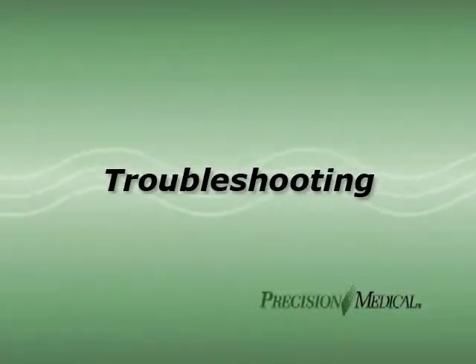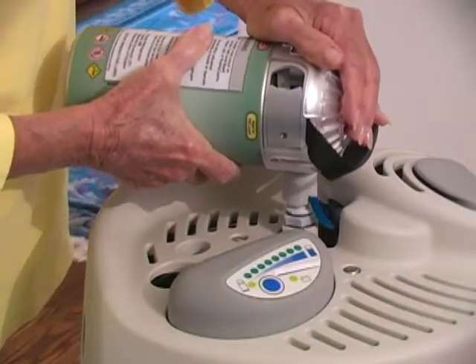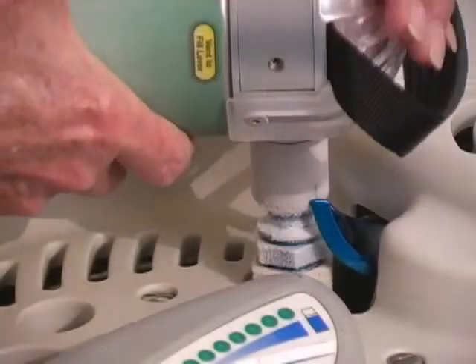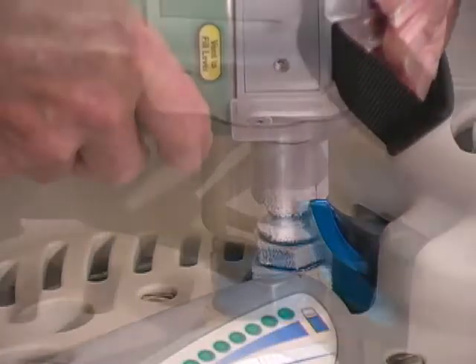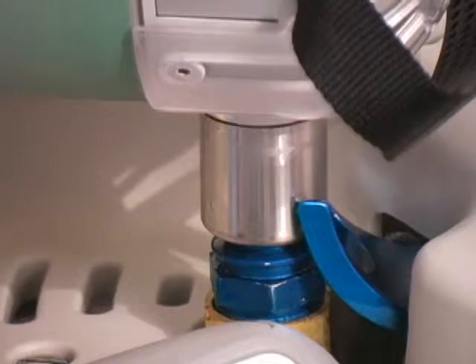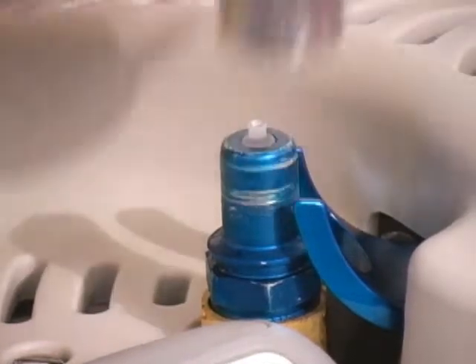If minor problems come up, here are ways to fix them. If you can't easily separate the reservoir and portable unit, they may have frozen together. Allow a few minutes for the ice to melt, then release the unit.